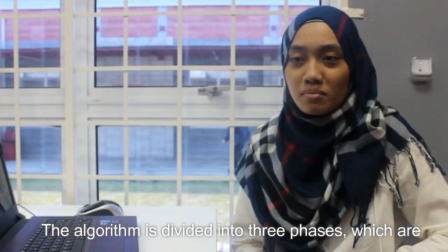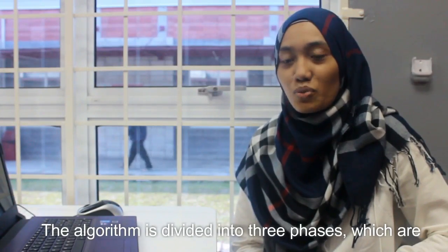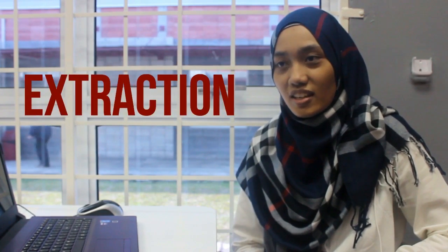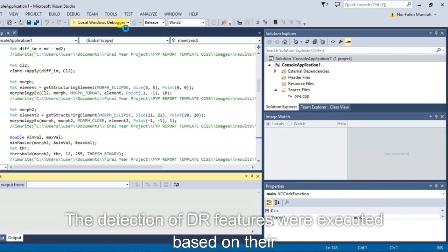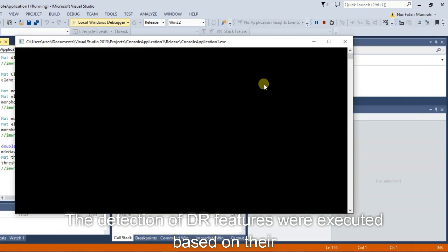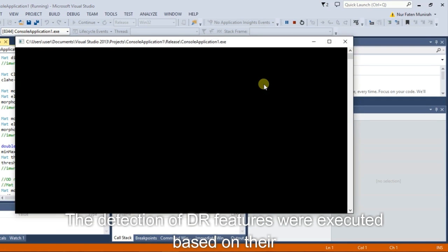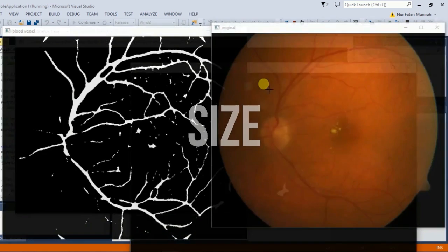The algorithm is divided into 3 phases, which are detection, extraction, and classification. The detection of diabetic retinopathy features is executed based on their intensity, shape, and size.